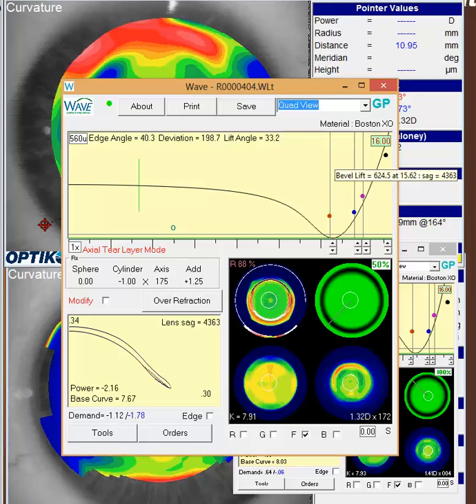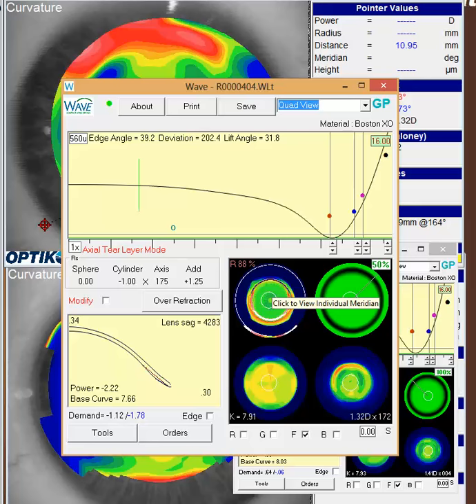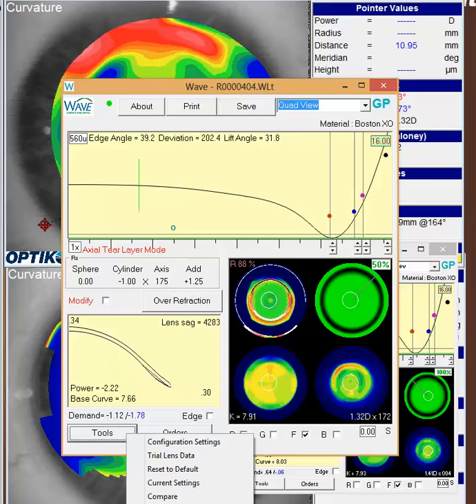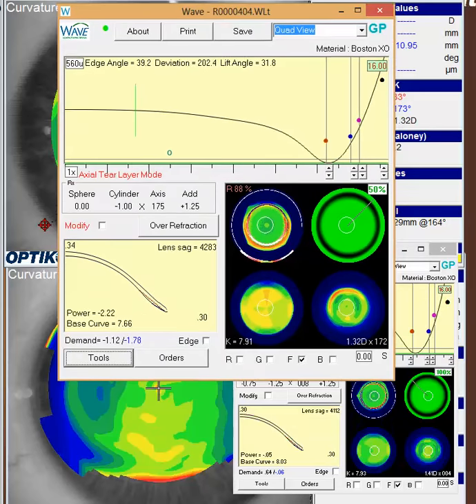And then you can adjust that edge angle to make it steeper, so that way you don't have a bump into things, or flatter, or need to do the same thing on the other side. So you just make a couple of little changes there. Another thought is just try to go to a smaller diameter lens. Either go down to 14 or 15. You could use the little tool in here that has a semi-scleral design.